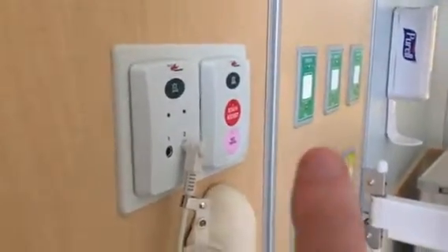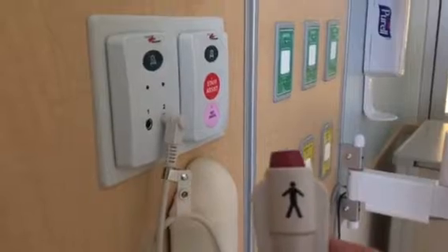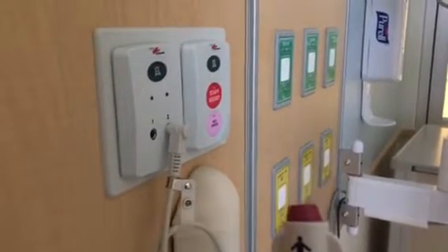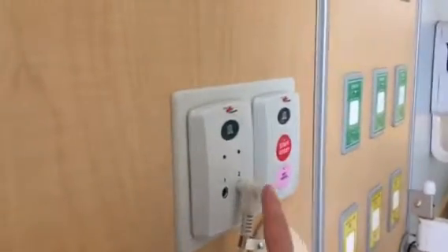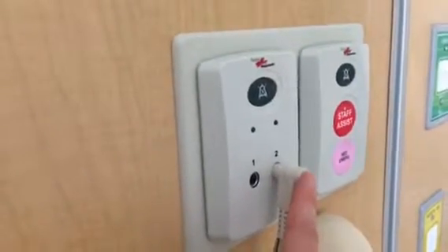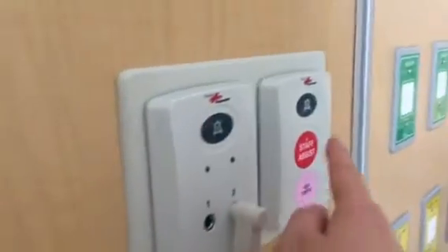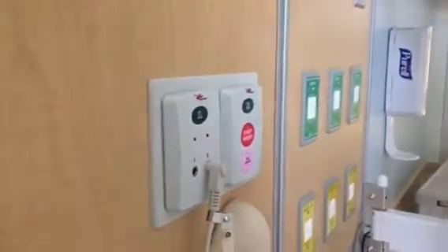This is the button mom would push if she needed help with the baby. Maybe she's holding, maybe she's feeding, maybe she's kangarooing. If she presses this, it sets off white lights outside of the room, calls the MA, and then the RN. To silence any of these, you have to silence it at the point of origin. Aux port number 2 is where the nurse call bell is plugged in, so if somebody presses that red button, I have to silence it from here. If I press these buttons, I have to silence it here, and if I just use the touchscreen, I have to silence it there.